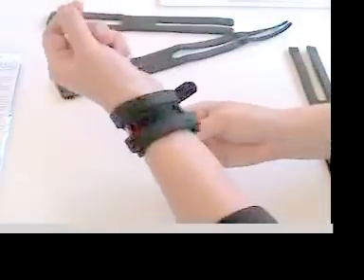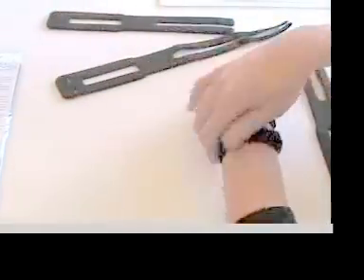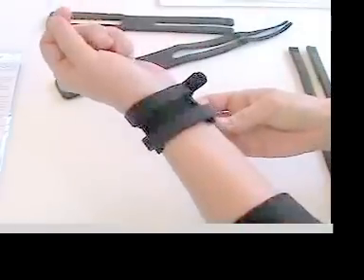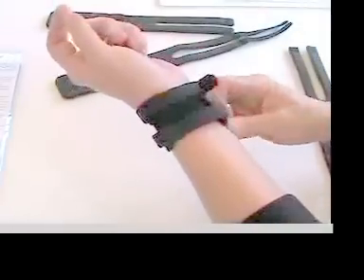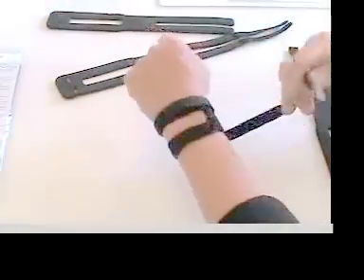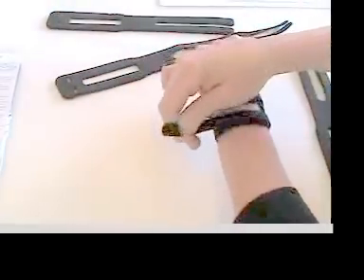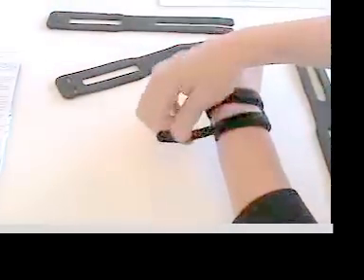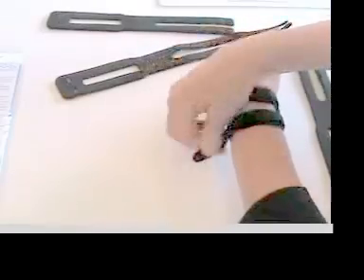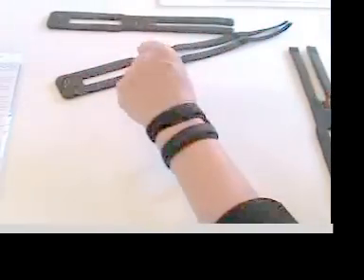You can do the same thing with tape, but you can't adjust it once you have the tape on. So it becomes very expensive with tape to get it just so. I would have it tight, quite tight when I'm using the hand.